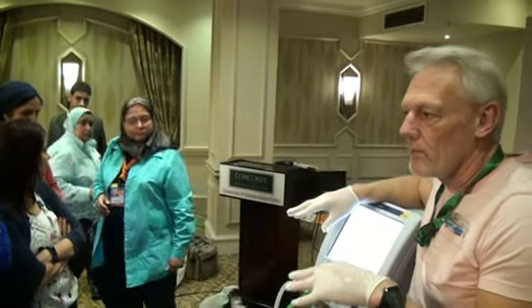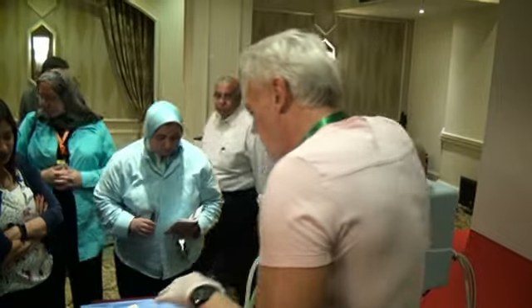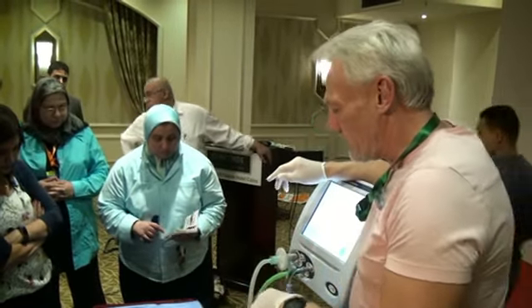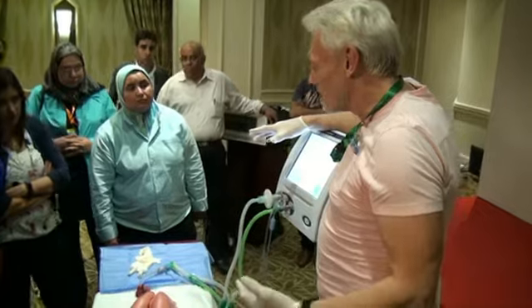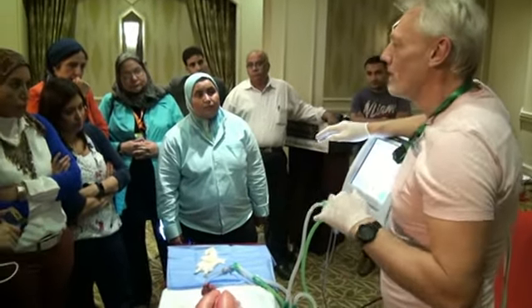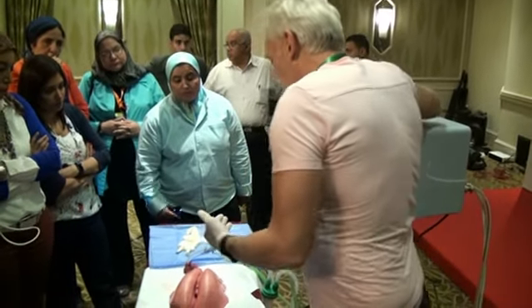Have you all seen the lung model before? One of the things I want to show is... I've just met this lung today, so I don't know the compliance, I don't know the resistance, and I don't know what size animal it's come from. So we have to ignore the settings, because they won't be real. But it's all about the principle of what we're doing.